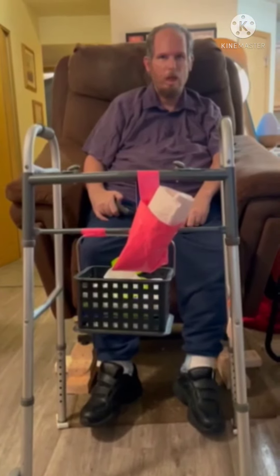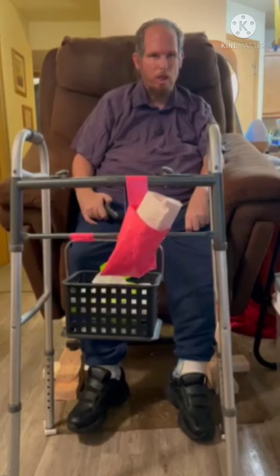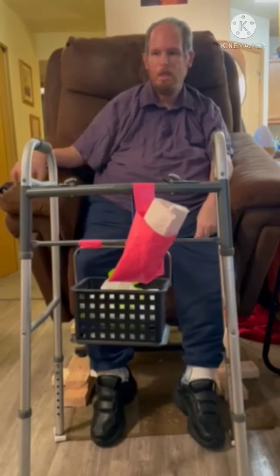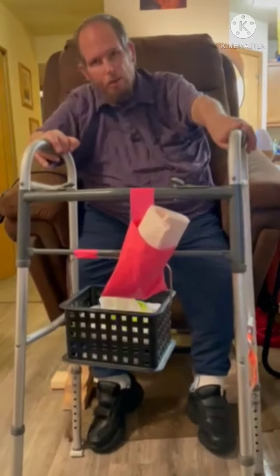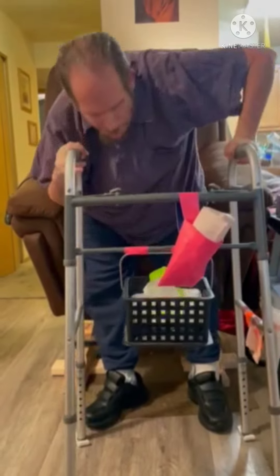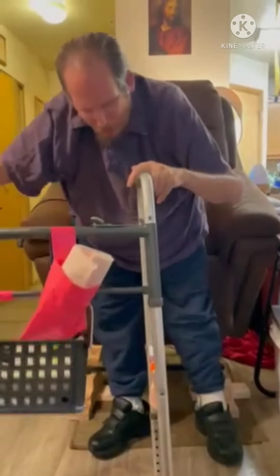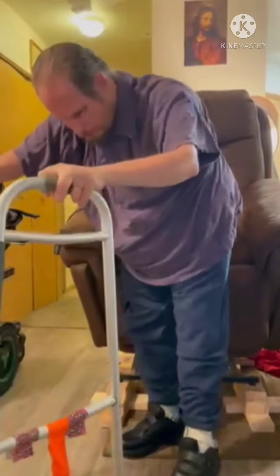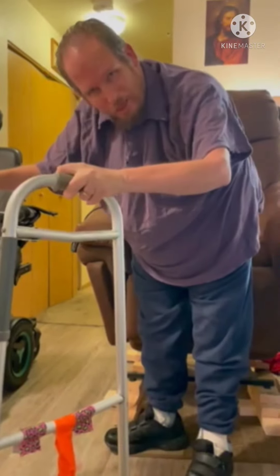Is the lamp in the way? Alright, hold on — here we go, here we go. And just like that, I'm out of my chair! Isn't that awesome? Thank you for coming to my TED Talk.